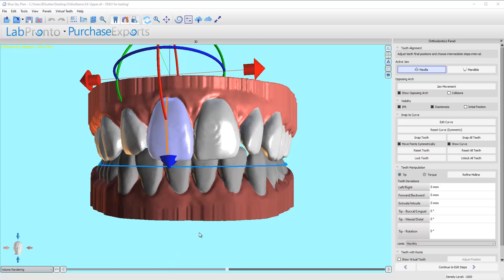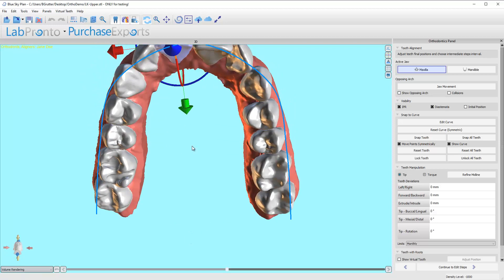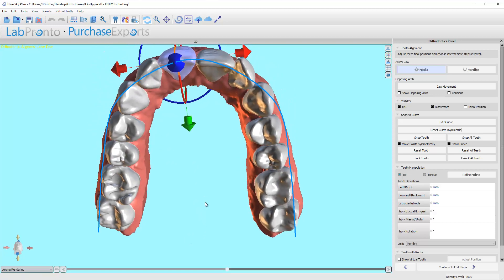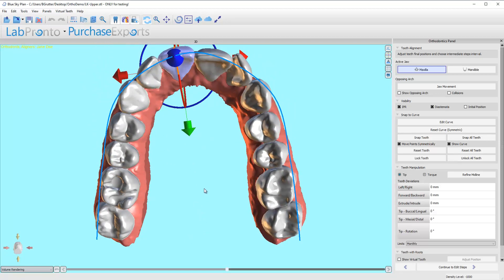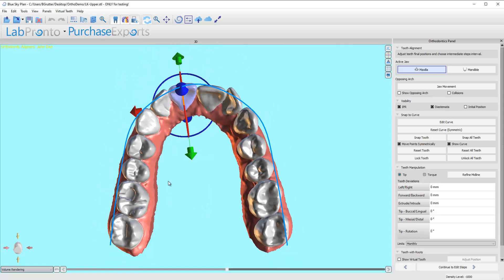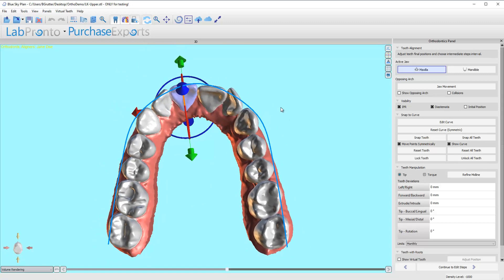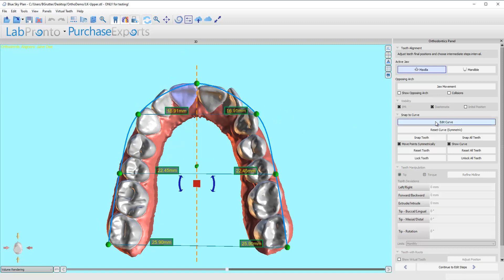One of the very first things I want to introduce you to is a new feature that we have just concluded testing: the new snap to curve line. If you notice, there's no nodes visible at the moment, and that's because they're only going to be visible when you click on edit curve. Here's why we now have a symmetric snap to curve line where we can see the dimensions.